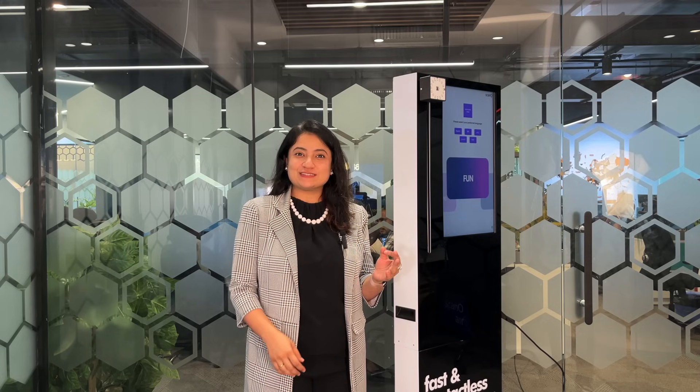Hello fellow doctors, welcome to the world of Scano, where oral health checkups are seamless and breathe just like air.